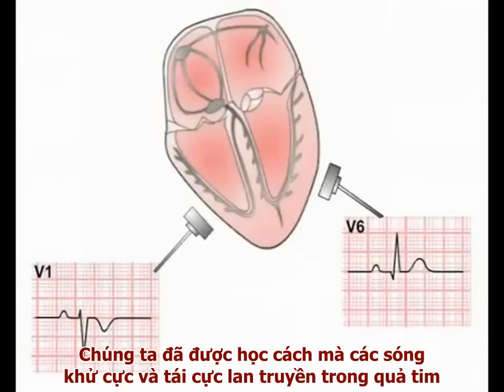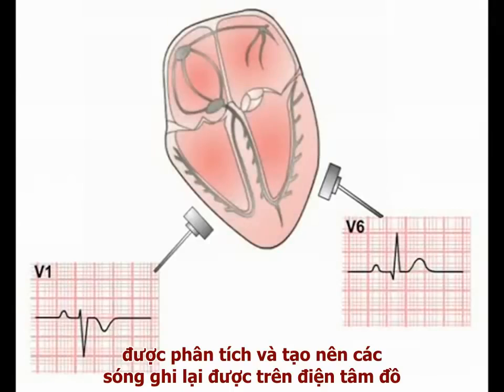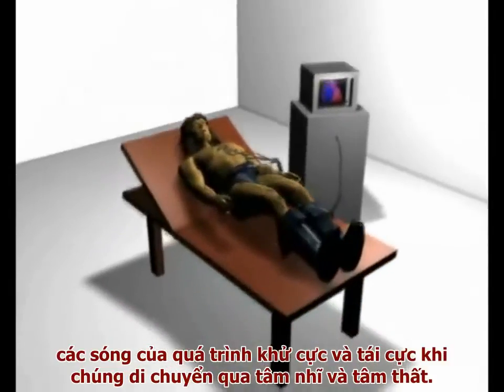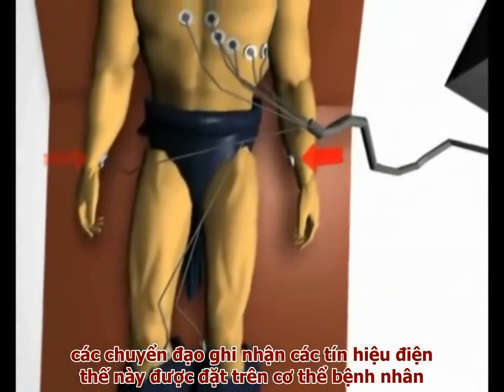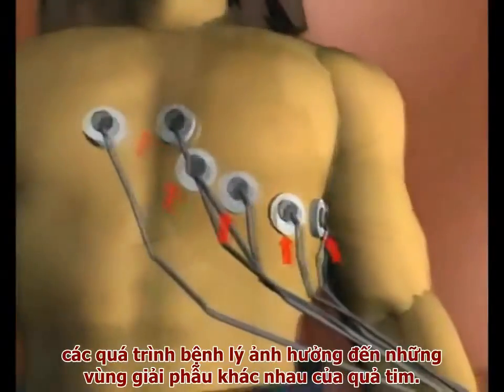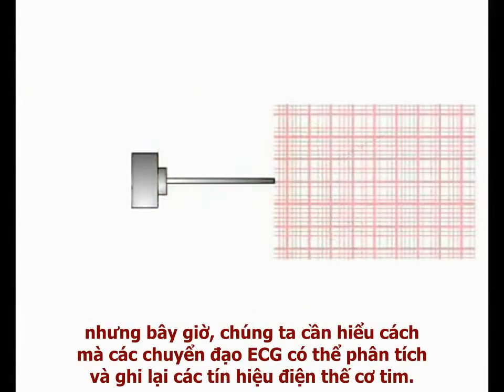We've seen how the cardiac depolarisation and repolarisation waves spread through the heart. Now we will explain how these electrical events are analysed by the ECG leads to produce the waveforms of the ECG readout. We will work with the 2D schematic of the heart as explained in video 1. The leads of the ECG machine detect the movement of cardiac depolarisation and repolarisation waves as they spread through the atria and ventricles. Leads placed on the patient's body record the flow of current through the heart from different perspectives, giving information about disease processes affecting different anatomical regions. We need to understand how the individual ECG leads analyse and record cardiac current.